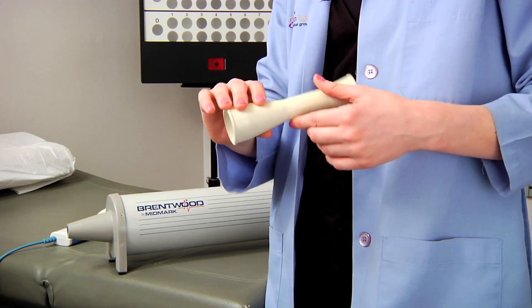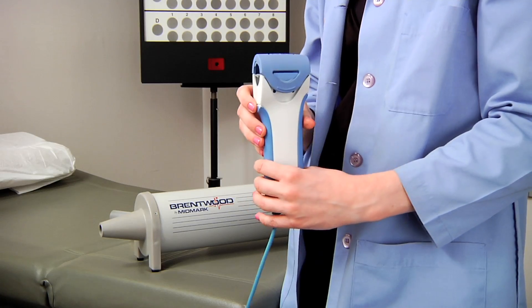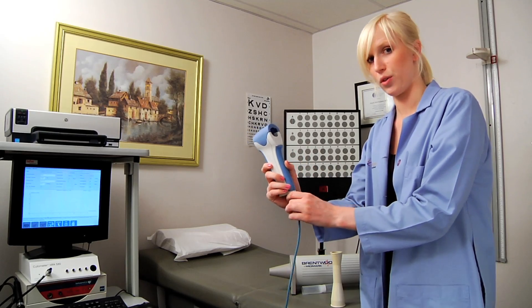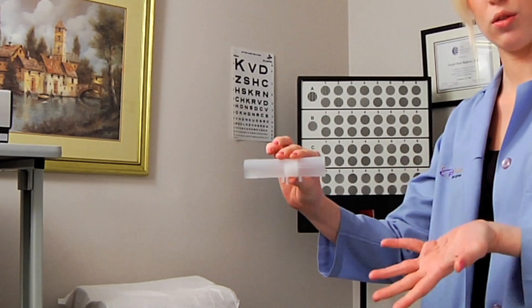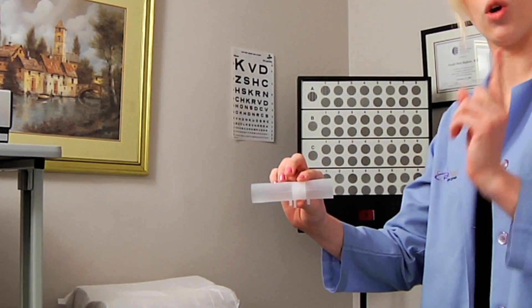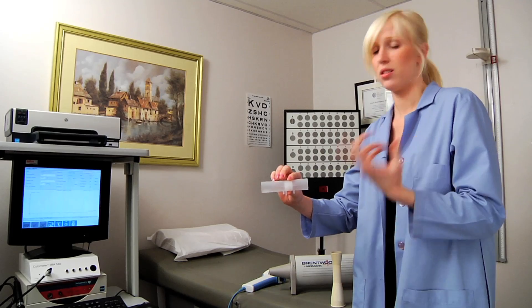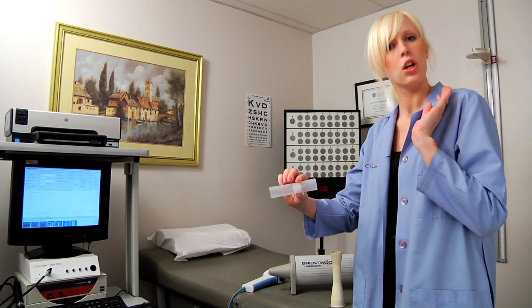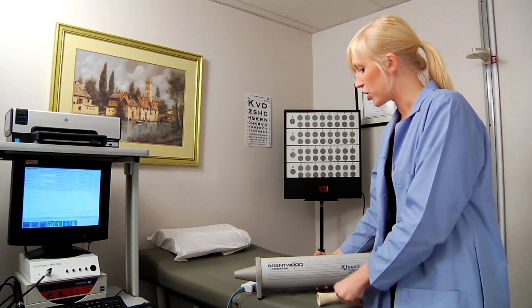The first thing is this — it's called an adapter. You have your handpiece, which you're going to use for the test as well, but you need it for the calibration too. You're also going to need a mouthpiece. This is what the mouthpieces look like that you'll use with your patients, but I suggest you open a mouthpiece and keep it for calibration only. It's a good idea to write on it with permanent marker so you don't accidentally throw it away thinking it's a patient's.